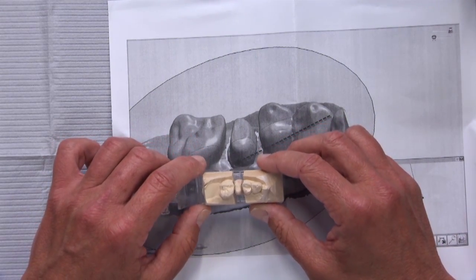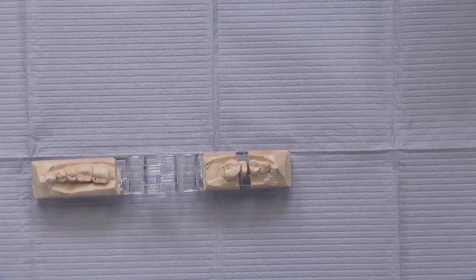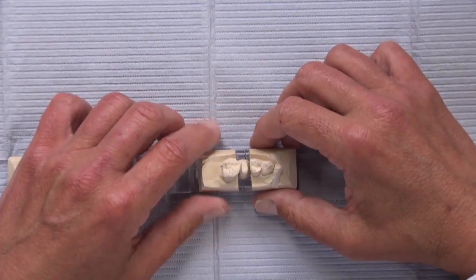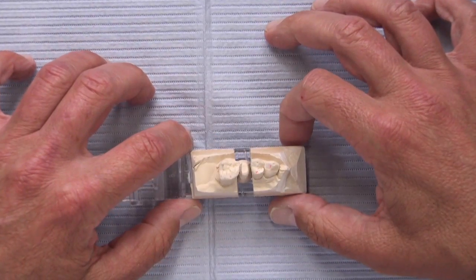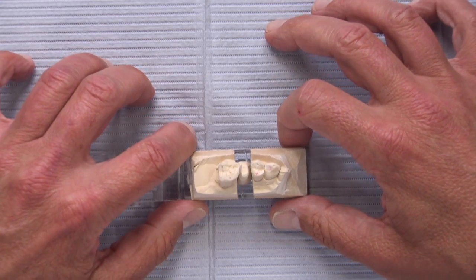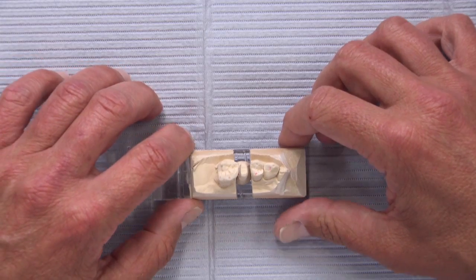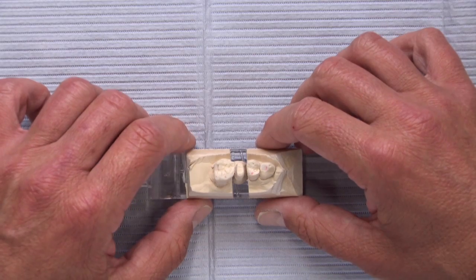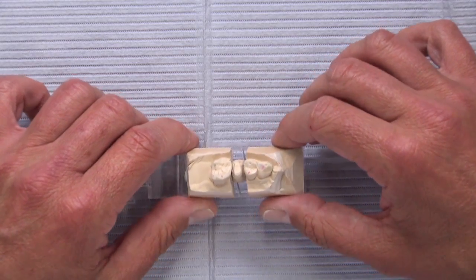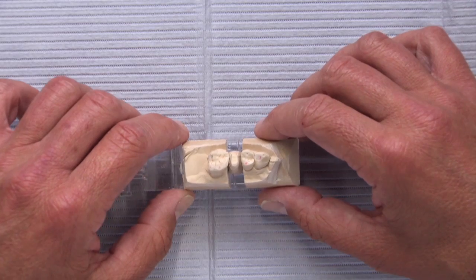Both of these undercuts are very difficult to deal with, and a decision has to be made. We call the doctor and they need to decide what to do. For very minor undercuts — say a tenth of a millimeter or less — you can usually make those work without doing too much to the crown or the preparation. It really starts to get dicey around 0.15mm, or 150 microns.